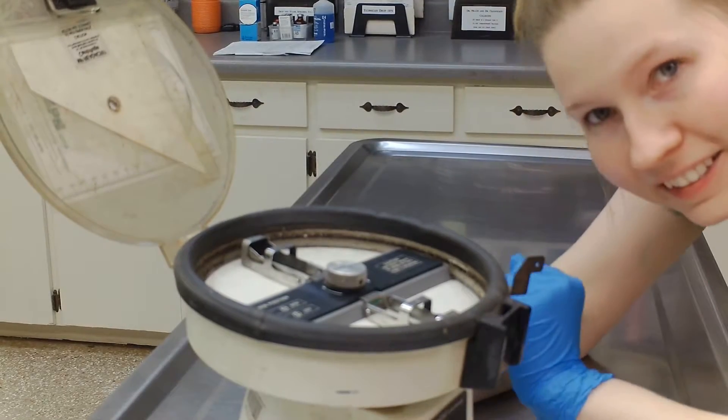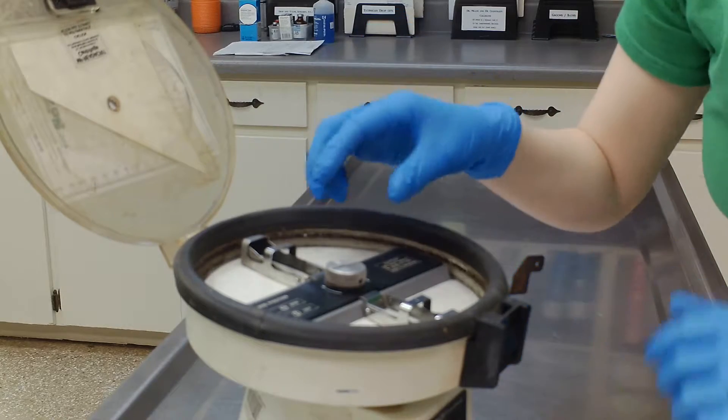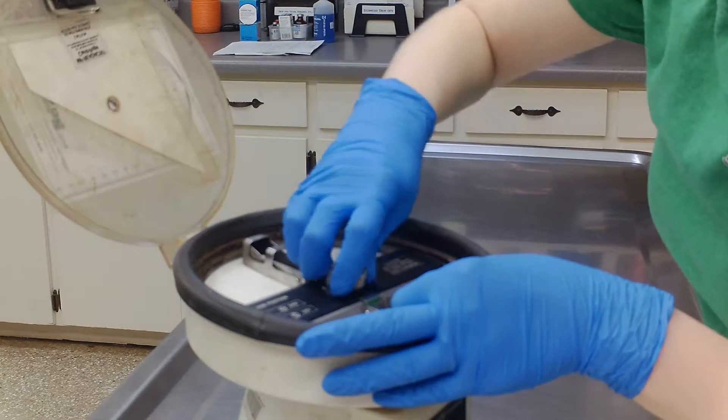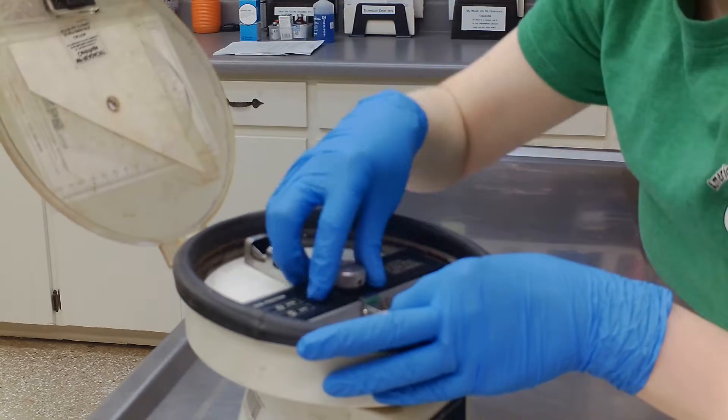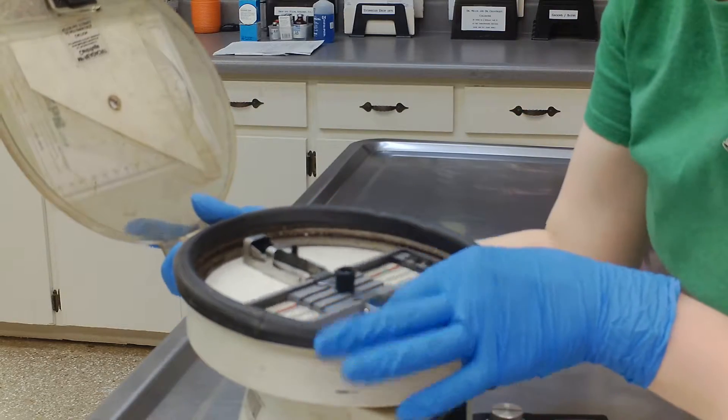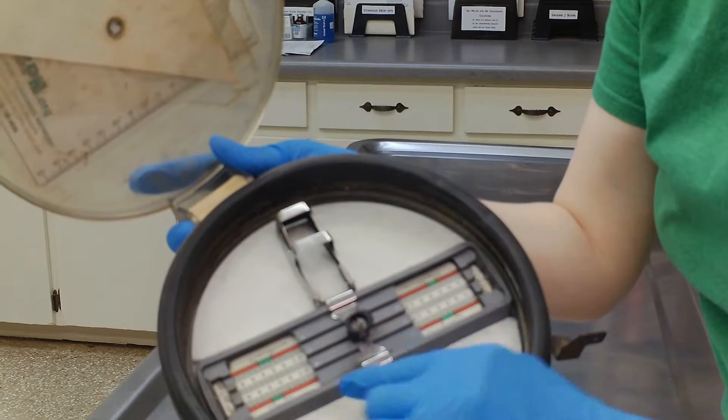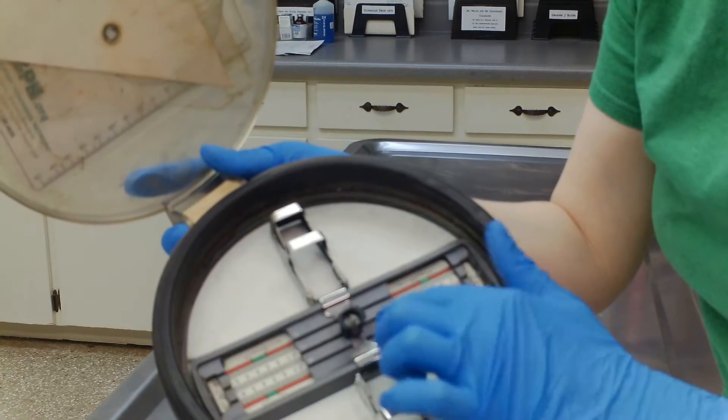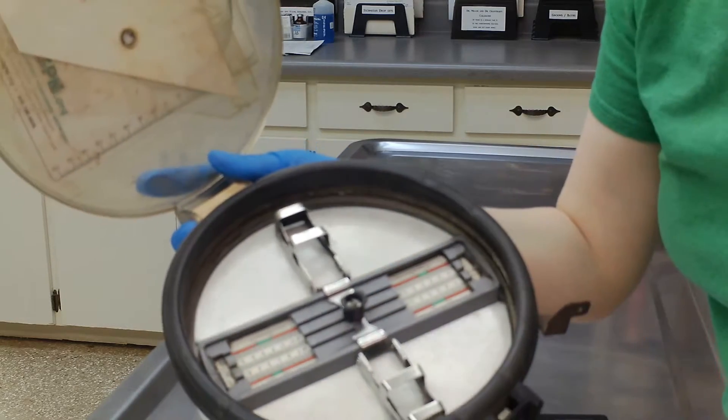All right, this is our microhematocrit centrifuge, but it does not work. I told you this in my email. But you can see here there are six places that we can put the microhematocrit tubes.